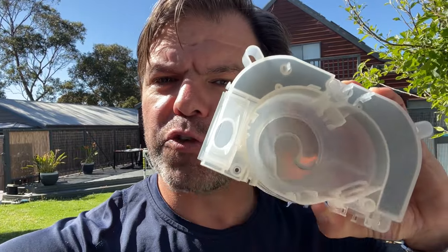G'day mates! Today I want to show you a really cool way you can remove the foam from your DreamStation 1 turbine casing without making any holes in it.